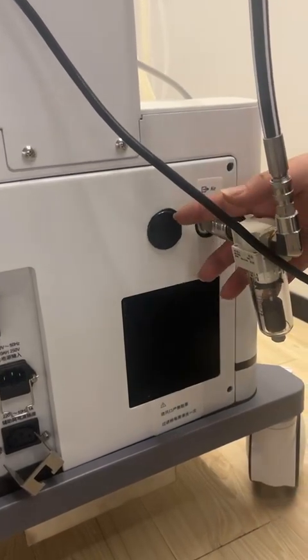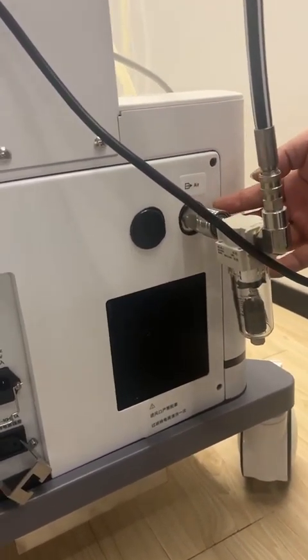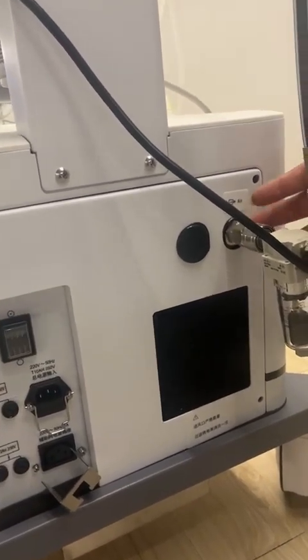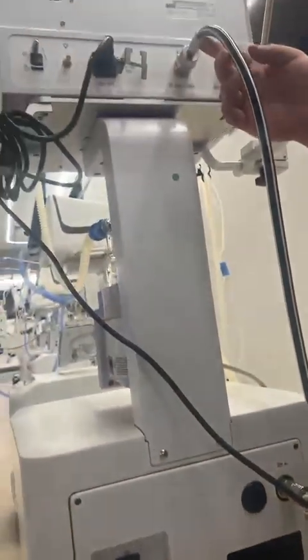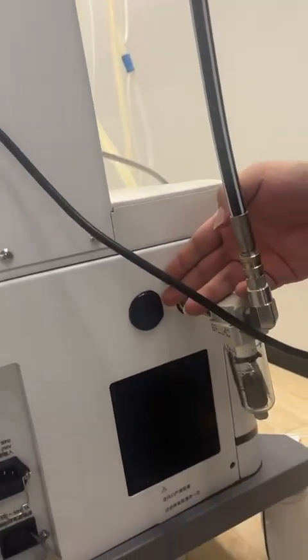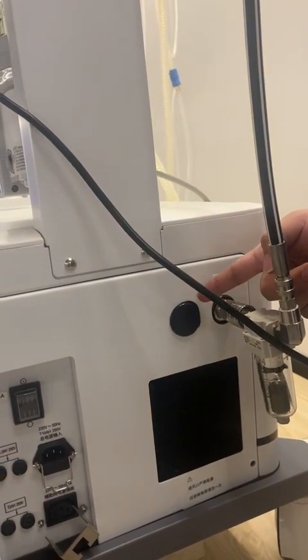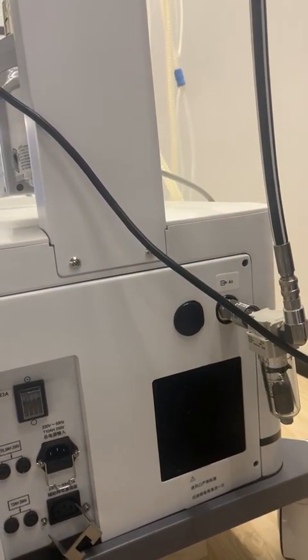And here you can see we have two ports. It's the fifth advantage. So here, the first port, we are giving the air from the air compressor and connecting to our main engine to provide the medical air. So why do we still have these options? Because if you need, we can also open this port for you. So this port you can connect with some other air source if your hospital has one.